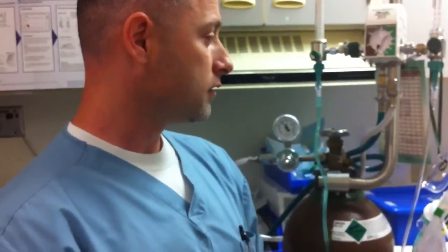We're giving the patient exactly what we set on our blender — we're not bleeding out anything else. And that concludes our discussion on Heliox therapy. Thank you.